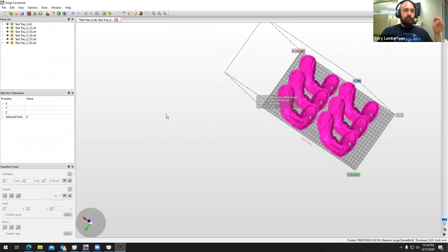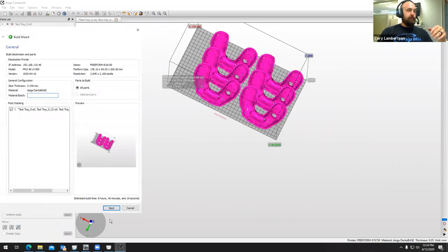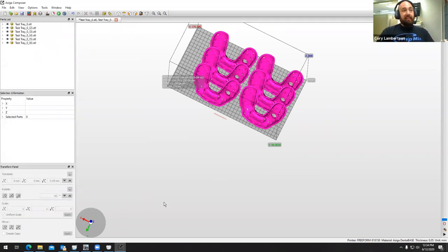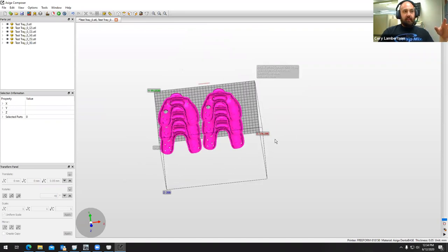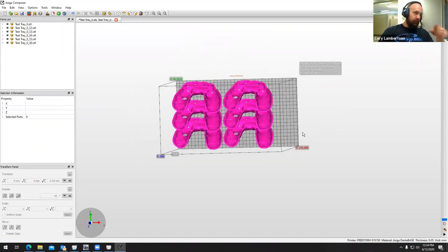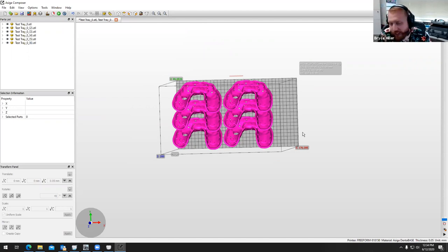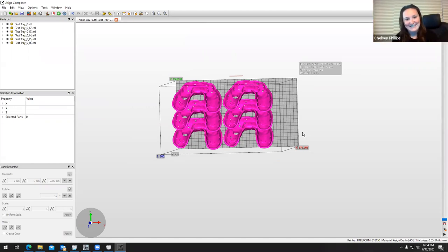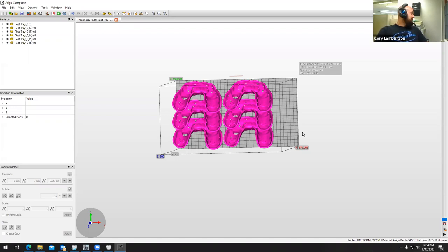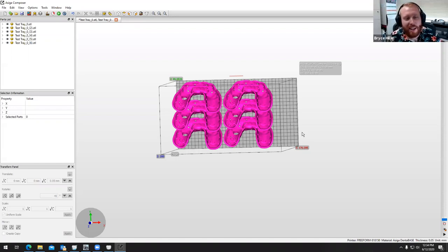And that's it. From here I'm ready to print — I would just open up the build wizard, send the job to the printer, and move forward. This is literally the easiest module inside of 3Shape. If you're wanting to learn how to maneuver through the denture module or RPD module and you're intimidated with moving all the teeth, this module is a great way to get primed for it because a lot of the tools are the same — at least for creating your border and boundary line. It's so easy a caveman could do it — so easy, we should do a spinoff of that Geico commercial about 3Shape.